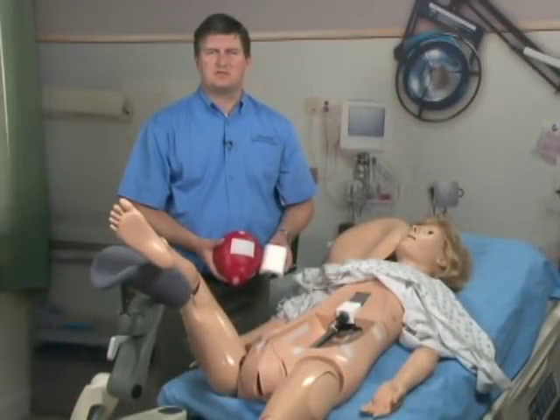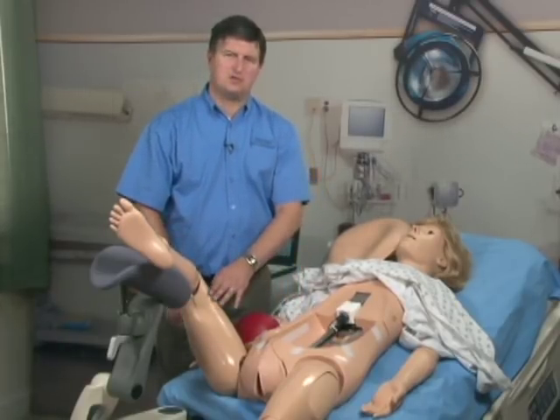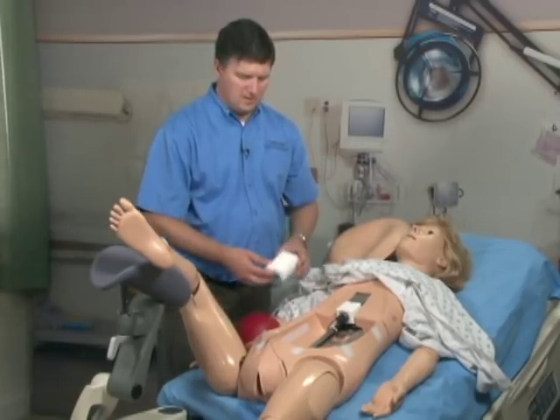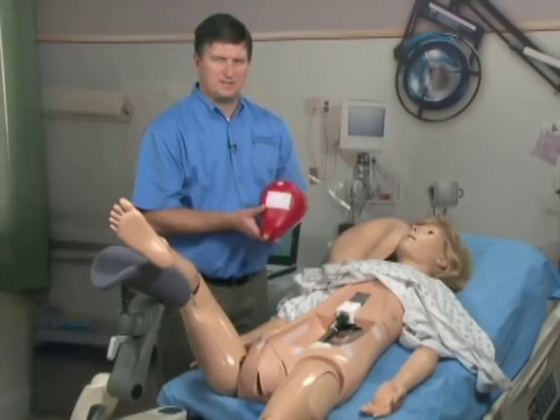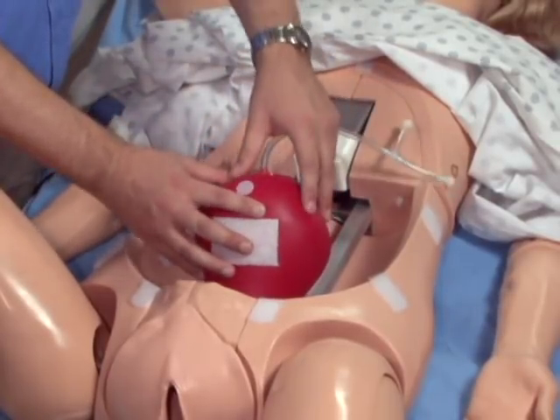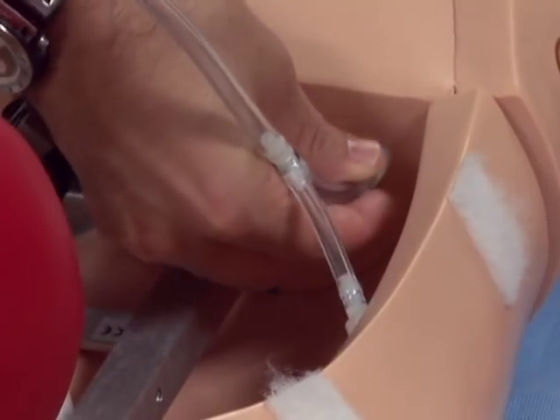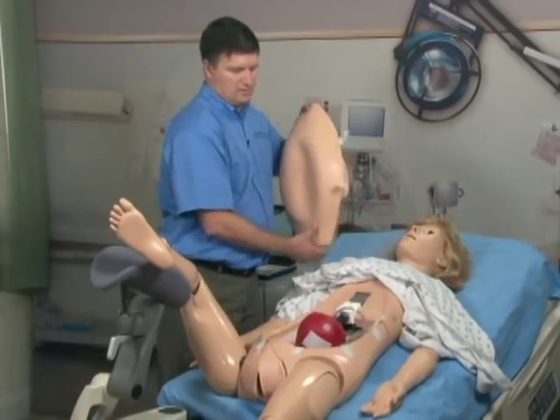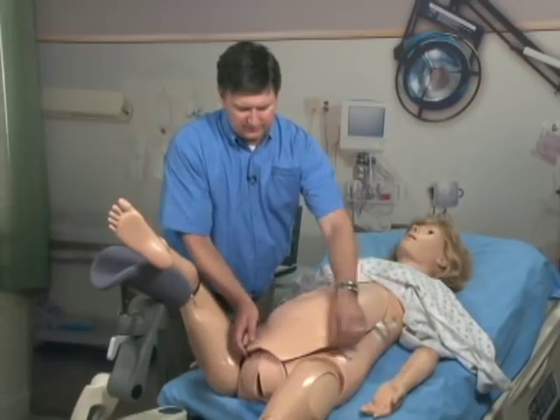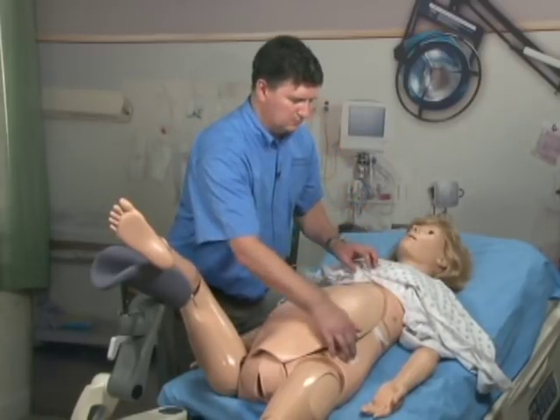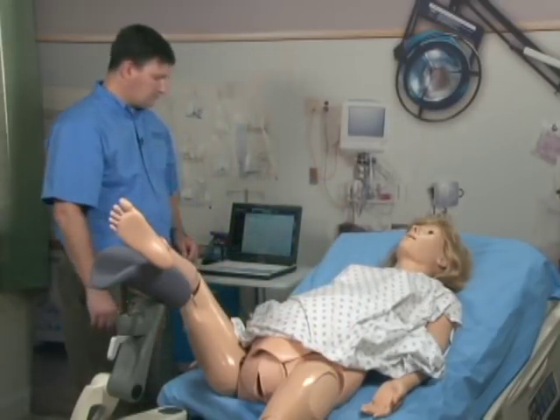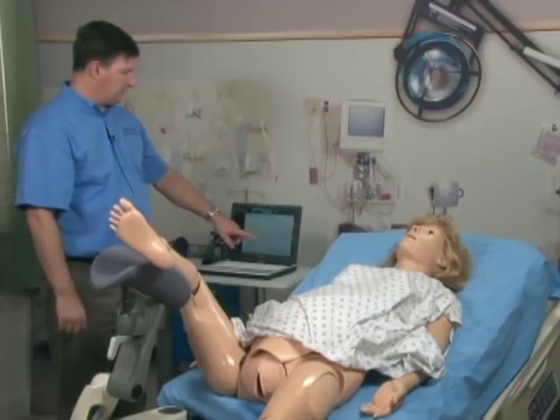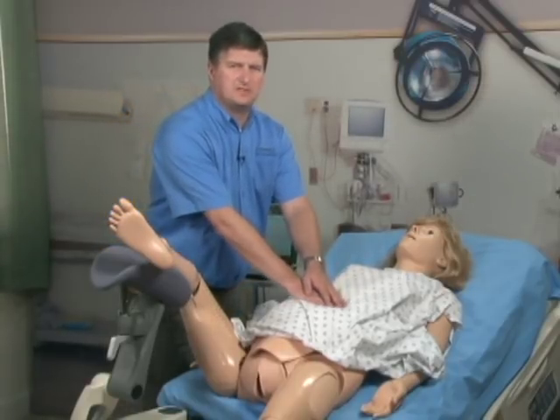Now, let us demonstrate how to set up for a postpartum hemorrhage scenario. Before beginning, ensure that you have put fluid into the leg. Set the raising block in place. Next, take the postpartum 48-hour uterus. Set this in place. Attach the tubing to the air feed. Attach the abdominal cover. Once you have all of that set up, you can now start the bleeding and set a uterine pressure on the software. Then, you are ready to begin fundal massage exercises.